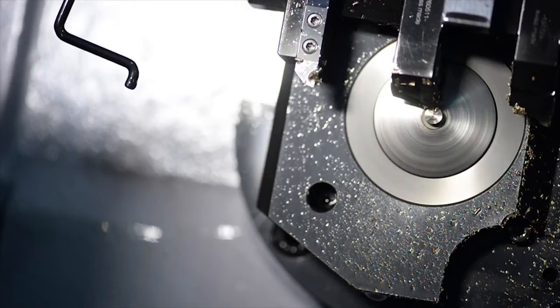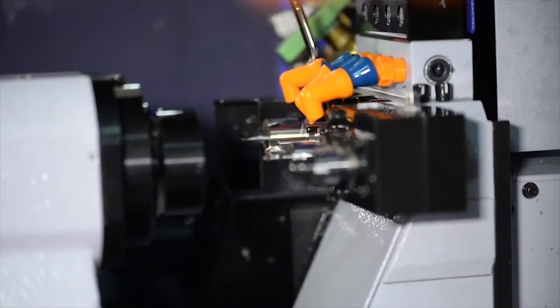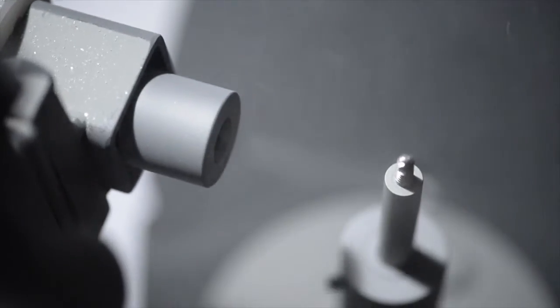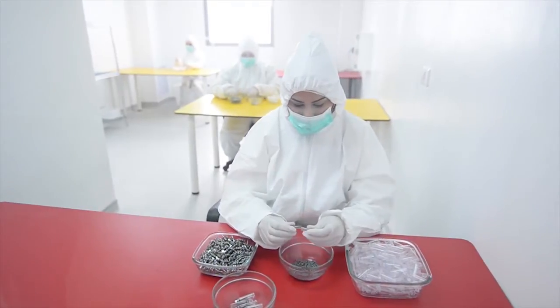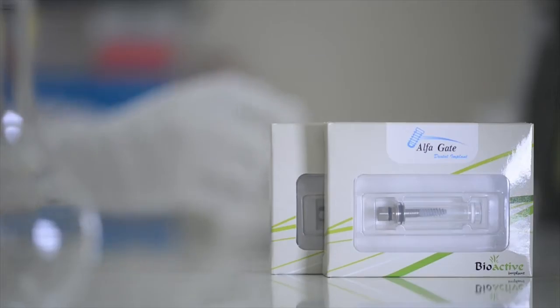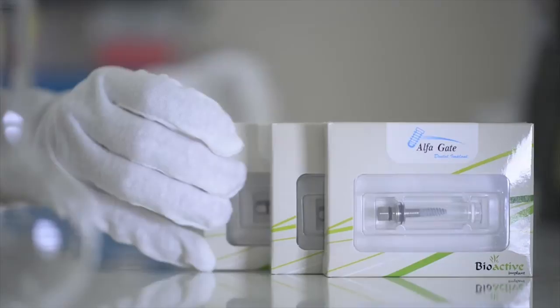After a special cutter creates the base for the implant, which is then cleaned and sterilized before being vacuum packed with its own individual certification. The implants are then packaged in rigid boxes to protect them and are ready for export to one of the agents in the company's international marketing network.